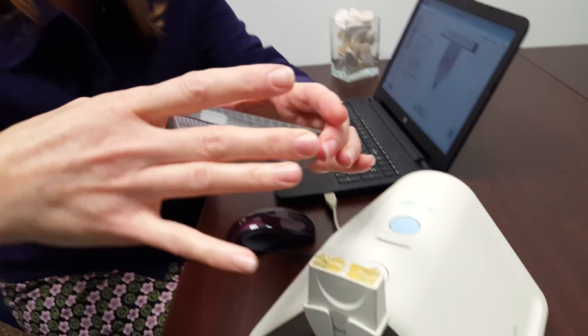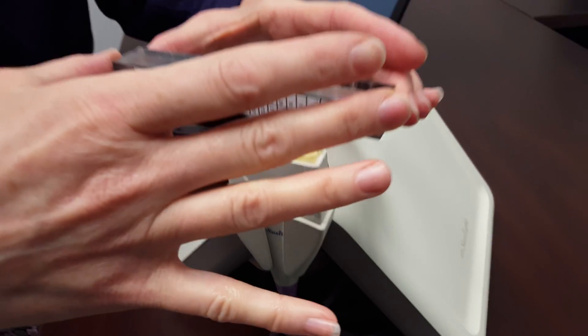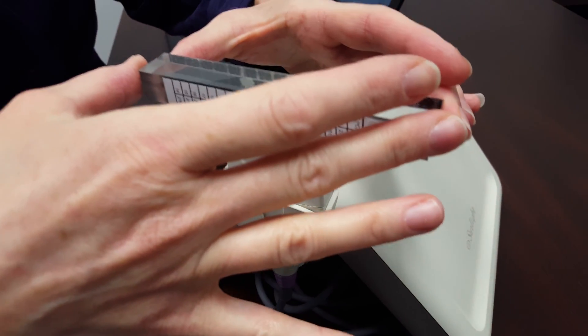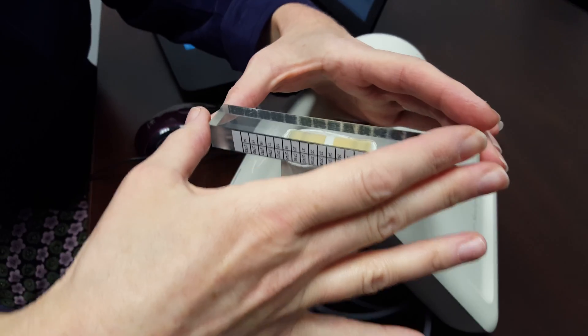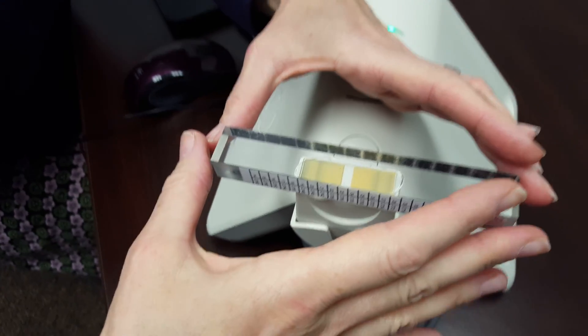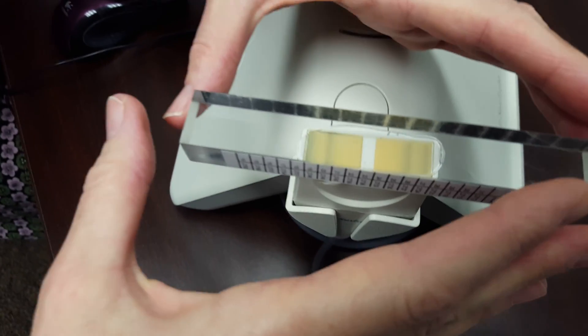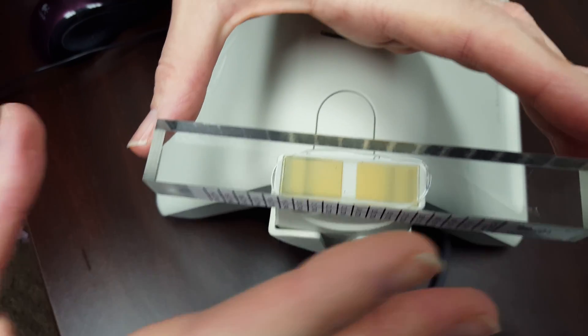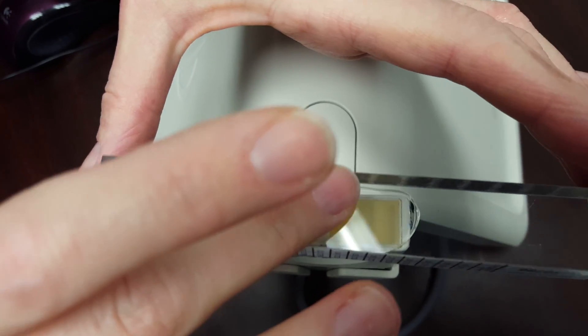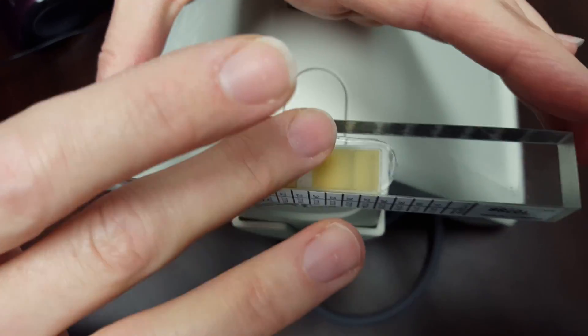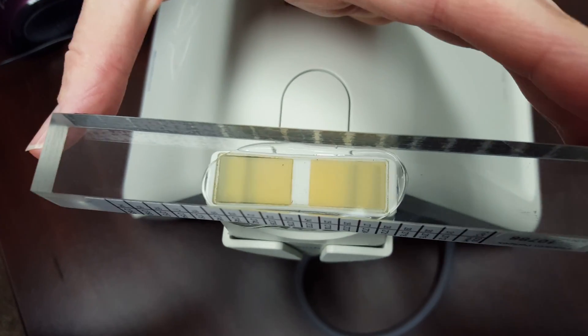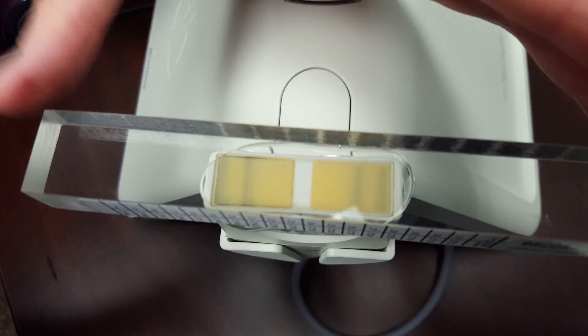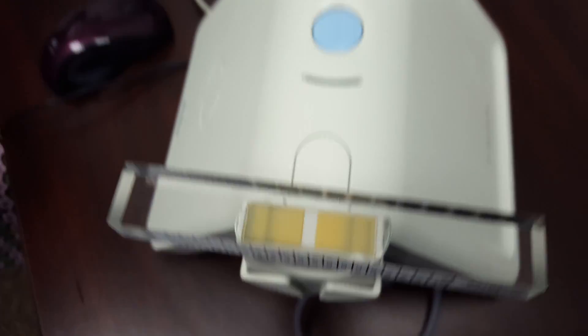The other item you want to remember here is that you're going to place the phantom piece on the probe, making sure there are no air bubbles. So you want to have this completely covered with no air bubbles, so you place that there.